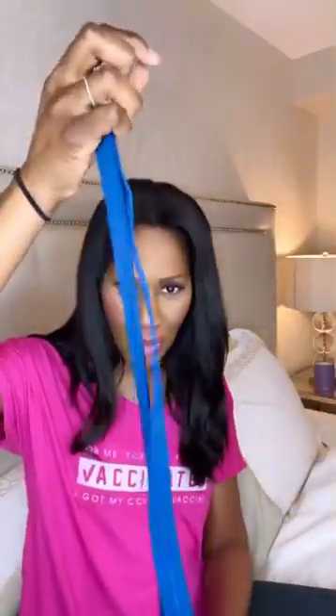This is the belt that came with it — I'm going to show you all about that. This is the nasal cannula, nasal prongs. And then also we've got batteries, which was nice of them to send batteries as well. For those of you who've ever done this, I wish you were here with me! But anyway, let's get started.